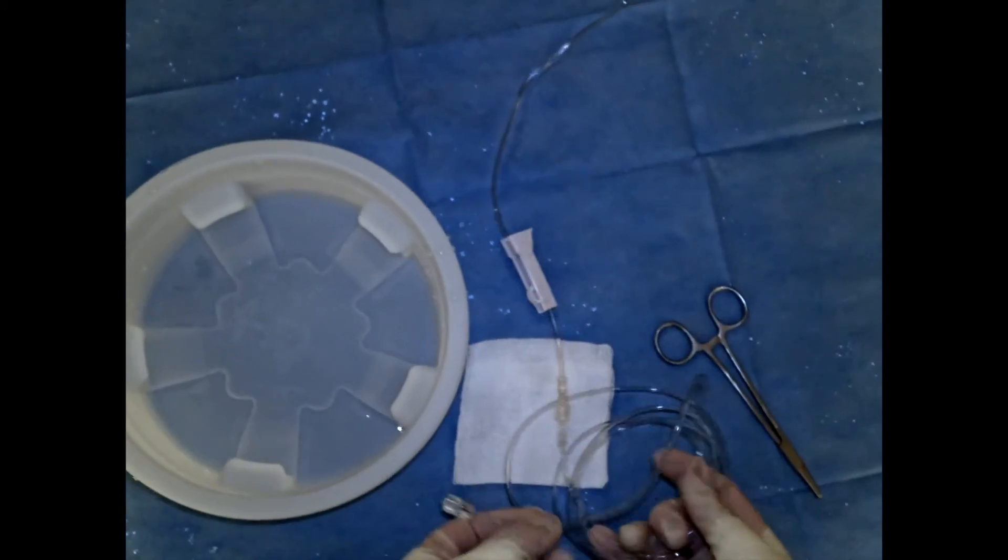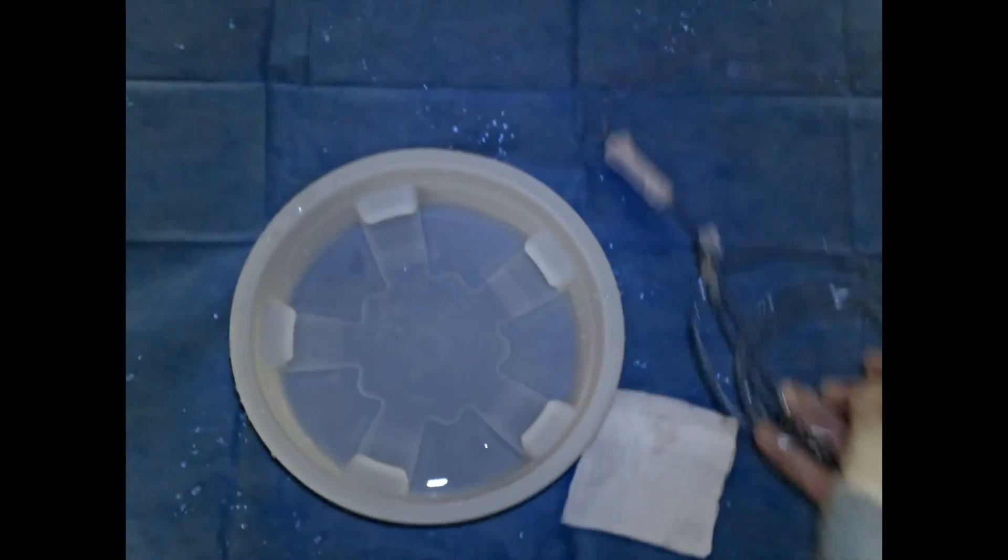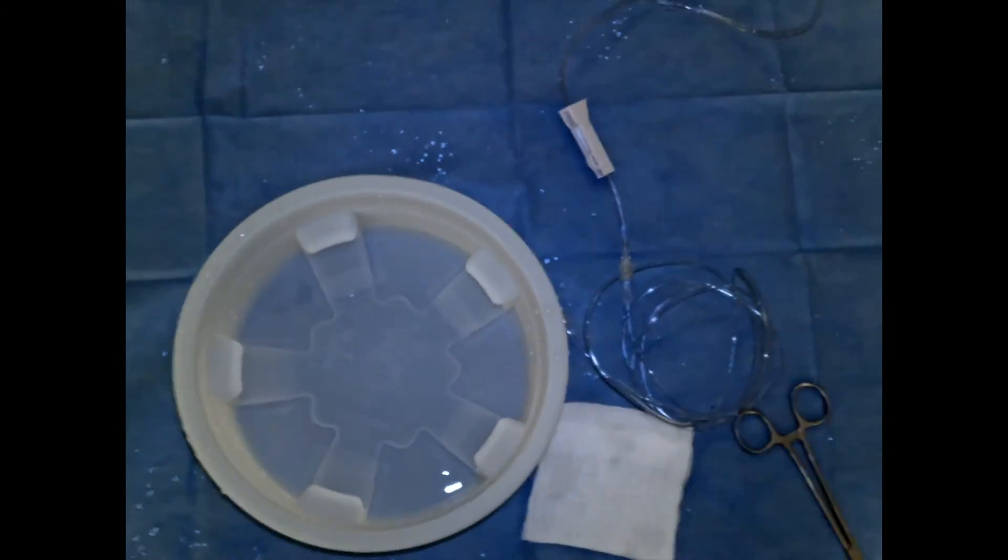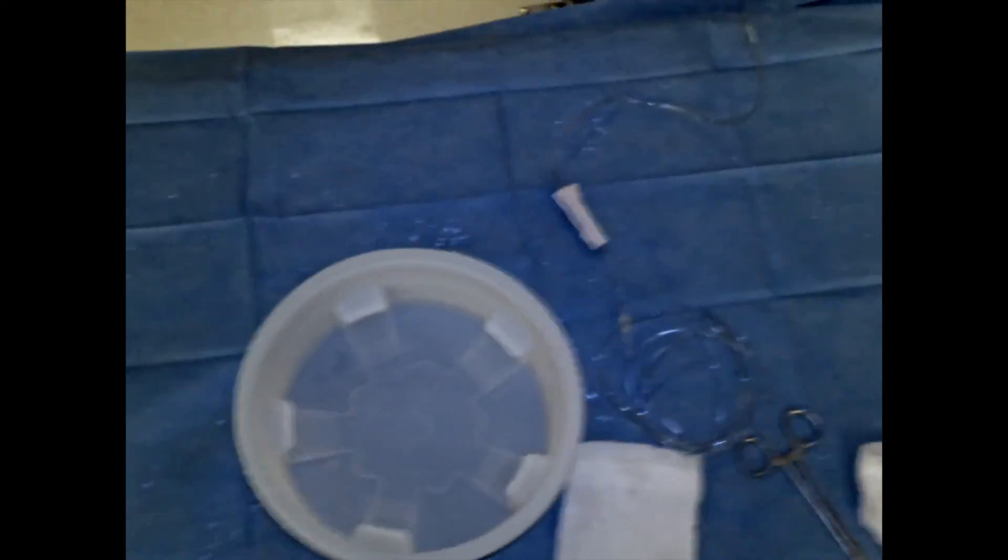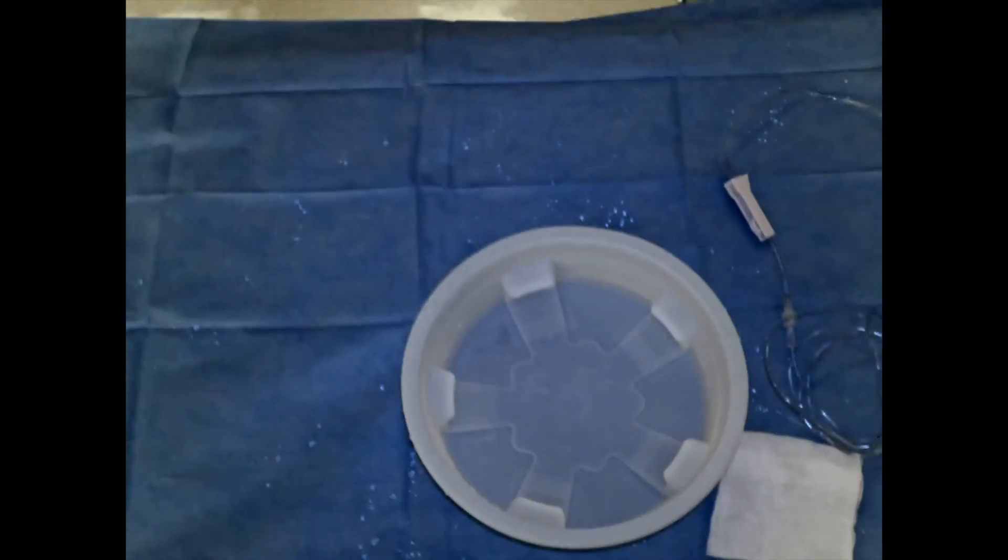We can set this aside and move on with our other preparation. This will have to be done for every drip line that you're doing. I'm only going to show you one example, but the same concept will be done every time for every line at the start of every case.